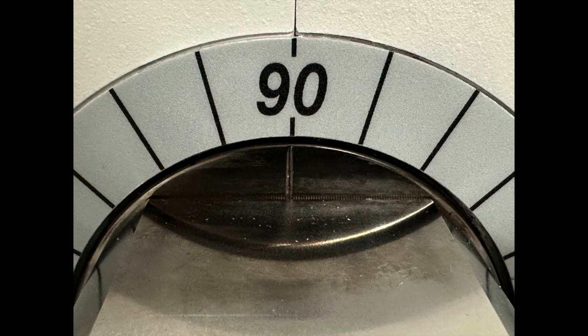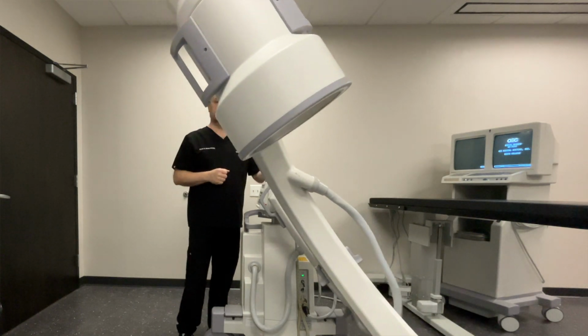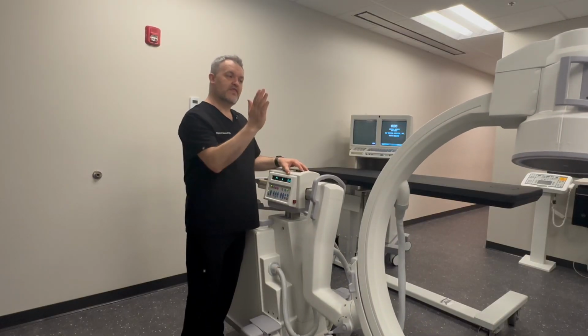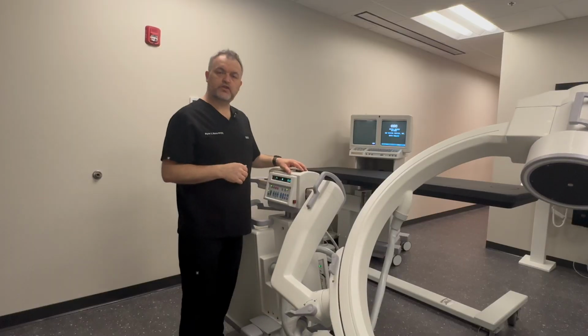And there will be a calibrated dial on the machine which can show you the angle that you're hitting. And then you can undo that, obviously. And then this would be tilt to the left. So if my patient is laying in front of me in neutral position, this would probably be tilt to the feet. And this would be your tilt function.